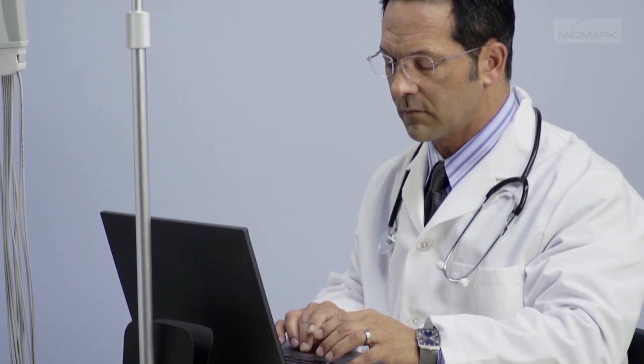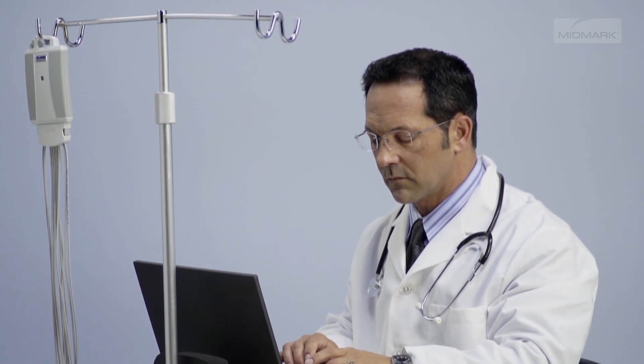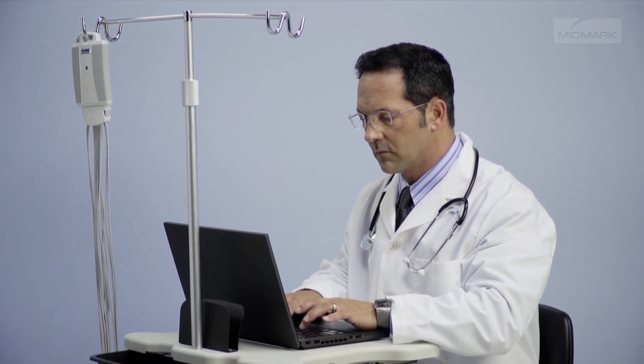If you are using an EMR, refer to your operation instructions for opening a Midmark ECG report for review. The remainder of this section is the same whether you are using an EMR or Midmark IQ Manager software.